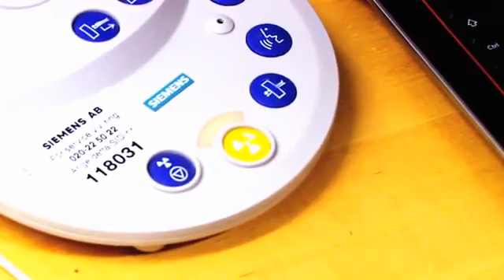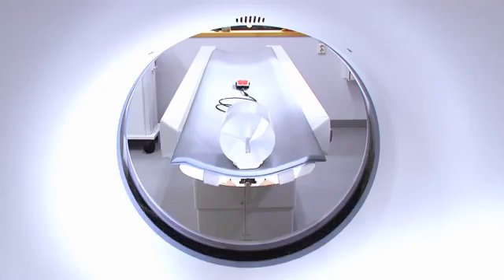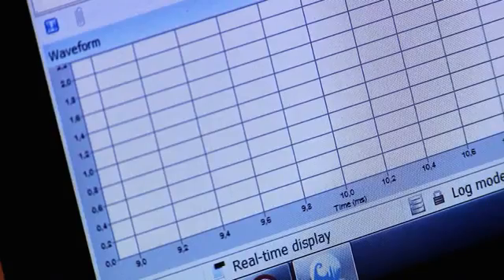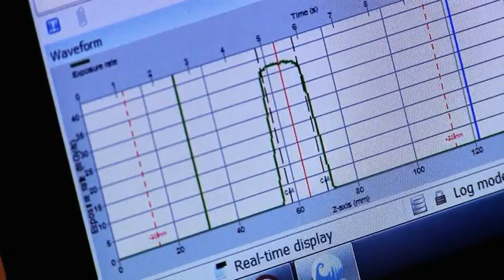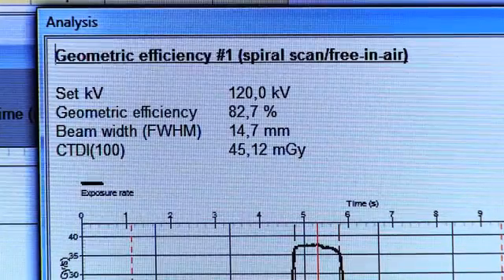Perform the new scan. Start the CT and start the measurement process in Ocean. Once the measurement process is complete, you will have a true picture of the X-ray beam and can study the CT dose index 100, the full width at half maximum and the geometric efficiency.